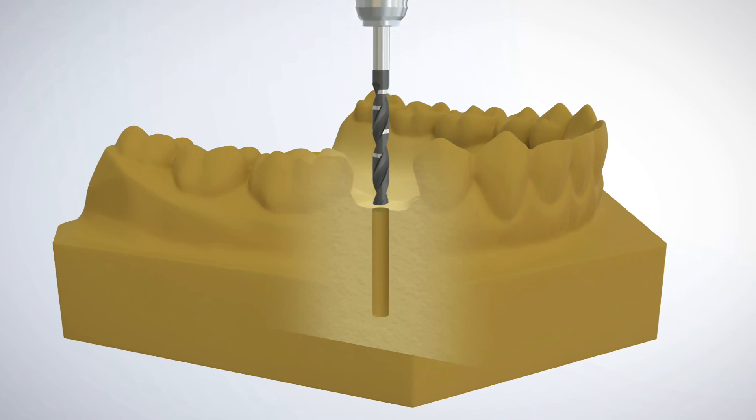The 2.3 millimeter diameter corresponds to the shaft diameter of the GRS locator pin used when making a vacuum formed GRS surgical guide.